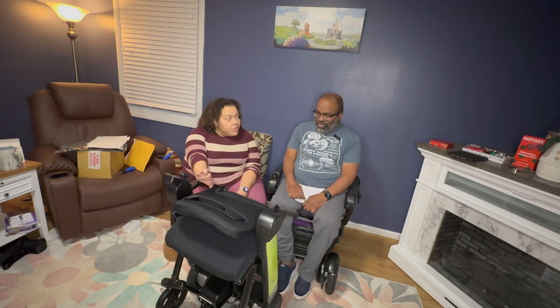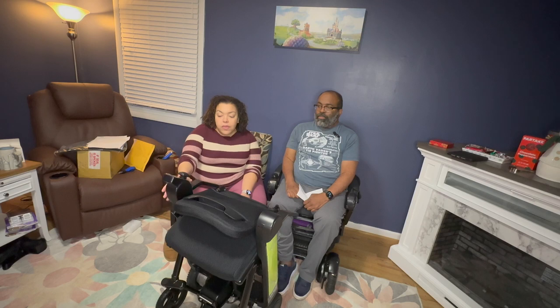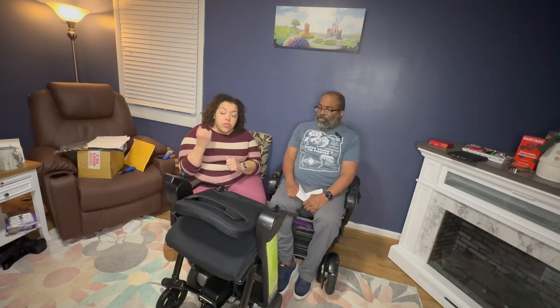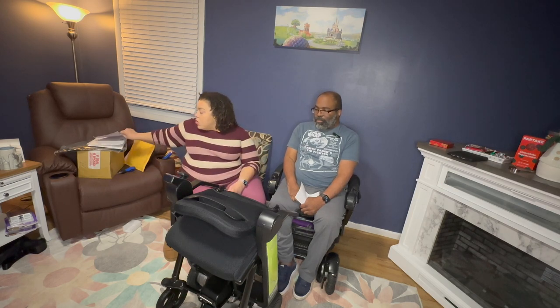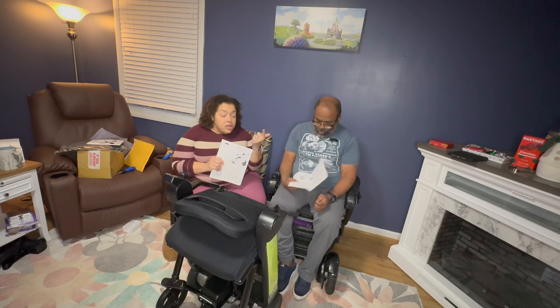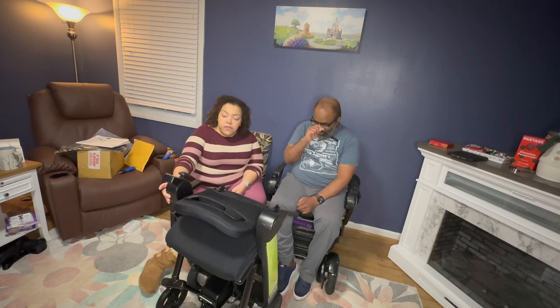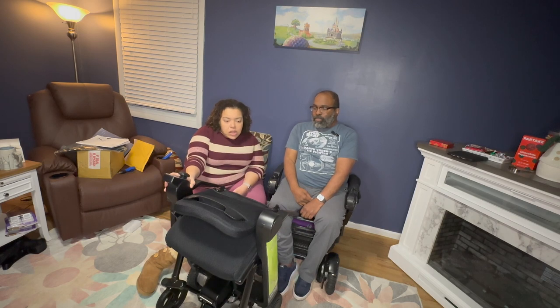So we're back. That took a little while — longer than we expected. I was expecting to pull it out of the box and have it work within five minutes. That was not the case. It came with the arms unattached, and you can make a couple of choices when attaching the arms: whether you want the controllers on the left or right side, and whether you want 16 or 18 inches of space between the controllers and the two arms. You follow the instructions in the big user's manual — don't bother with the piece of paper we showed earlier. The QR code was broken, and when we tried to type in the URL for the YouTube video, it went to a dead link. One confusing thing: you actually have to take the plastic covers off the device, which I didn't understand at first. Once I realized that, it went more smoothly.